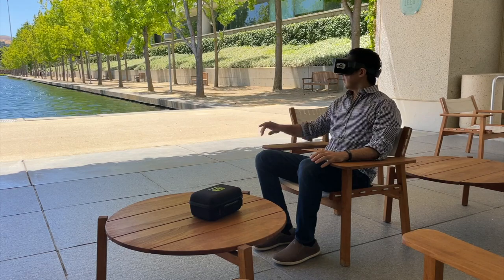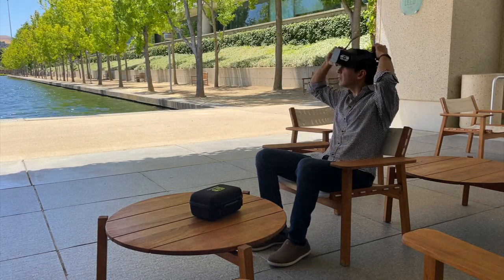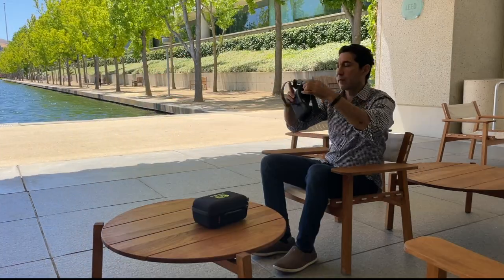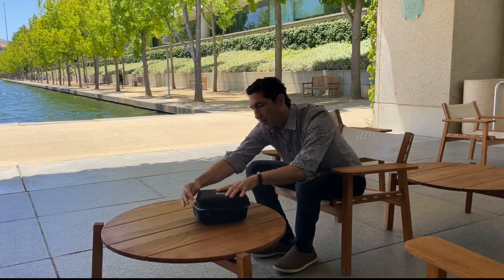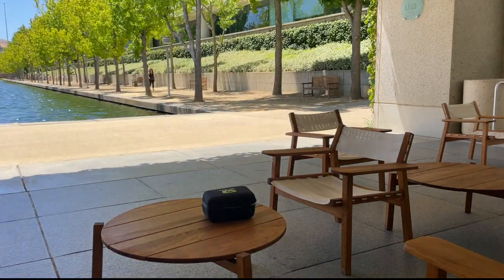Finally, it's important to make sure that you don't leave your Vision Buddy out in the sun. Doing so can damage the camera irreversibly and is not covered under warranty. Even leaving it by a window can also cause sun damage to your headset. We recommend putting the headset back in its case after every use for best practices.